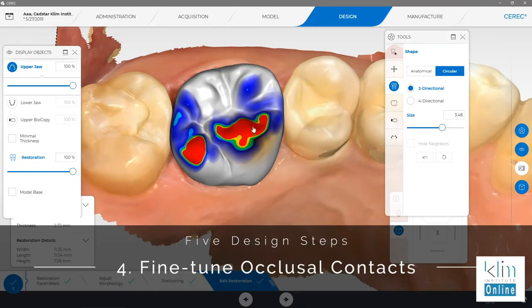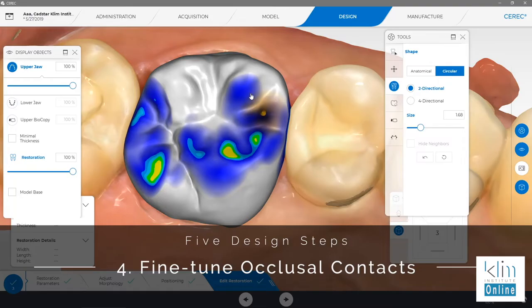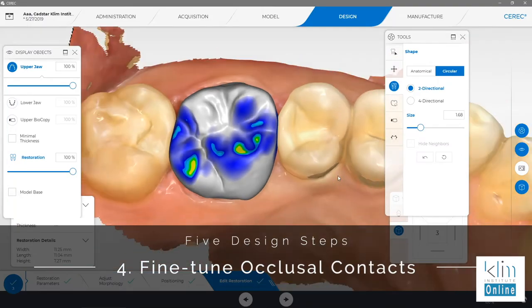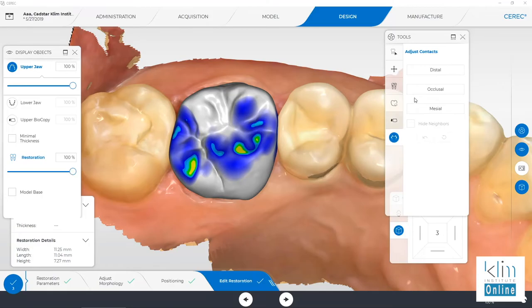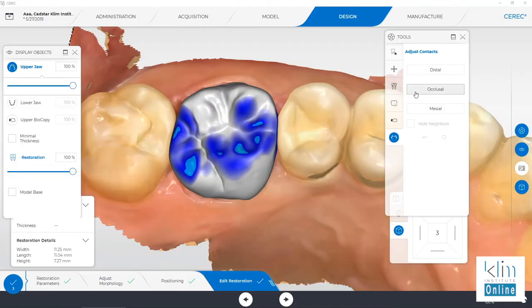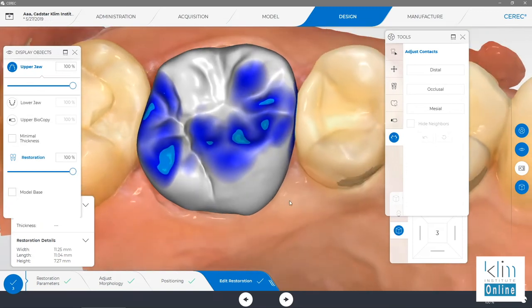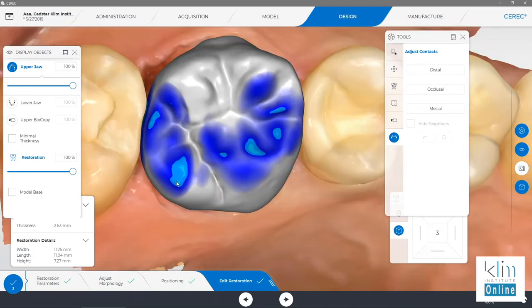Next is occlusion. Let's use our two-directional shape tool and take that occlusion down close to where we want it. Let's build up a mesial marginal ridge contact, and now we're ready to refine our occlusion. Click on adjust contacts — the occlusal command will reset that occlusion virtually to our parameters. The parameter for occlusion is occlusal contact strength negative 50, which is aqua when we're using our occlusal contact tool. Now we're not done with occlusion yet. What we want to do next is make the contact slightly smaller — one millimeter square and on non-inclined cusp.